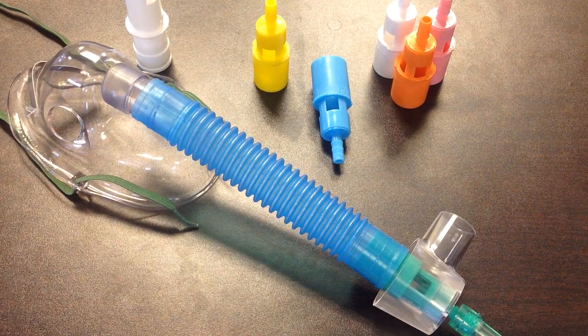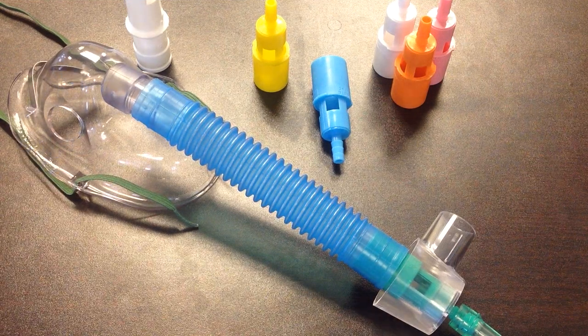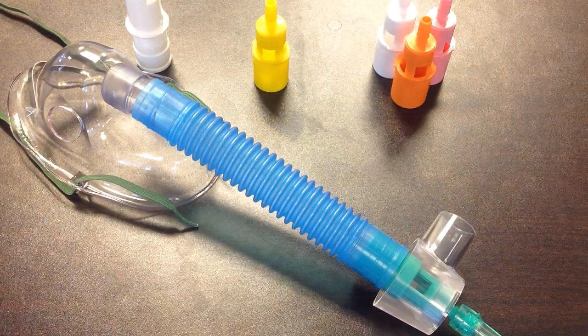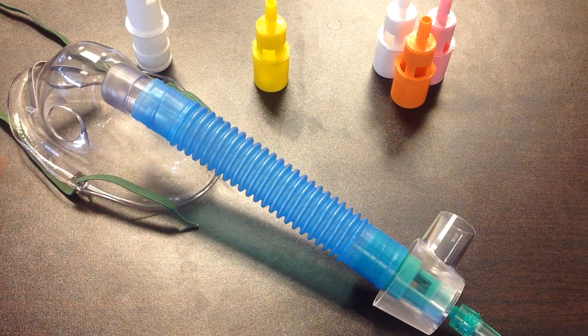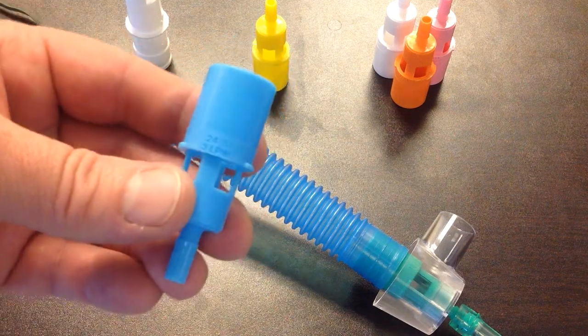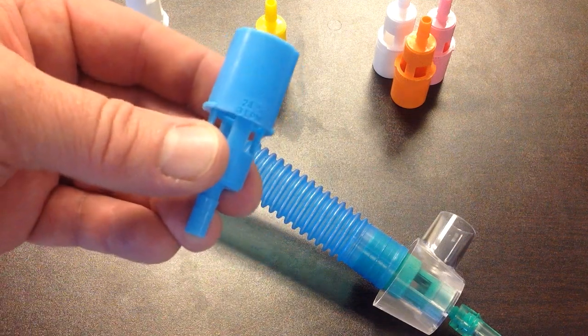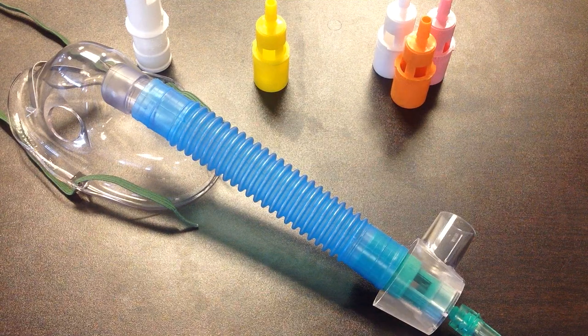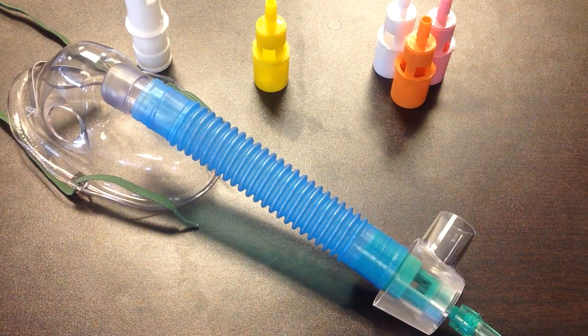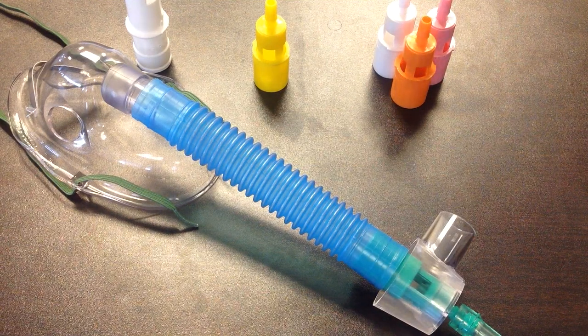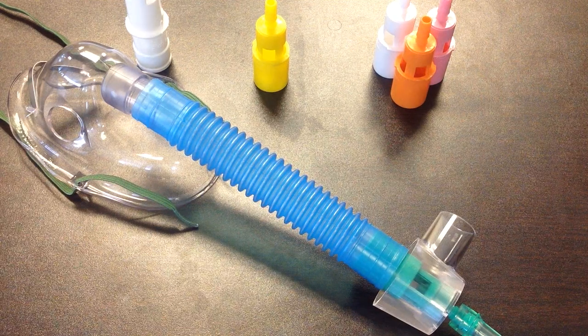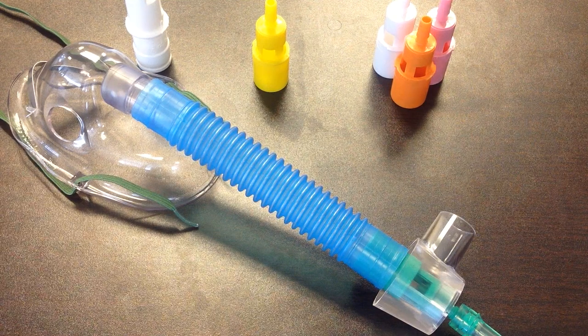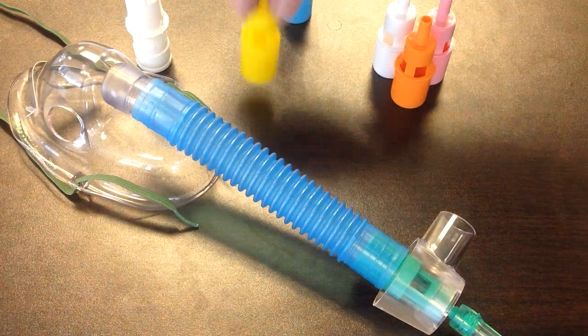Now with the nasal cannula, if you were delivering oxygen to someone and they were on 24%, that is this. But considering the nasal cannula is a low flow device, the patient may or may not get, if they're on two liters, they may or may not get the 28% oxygen.